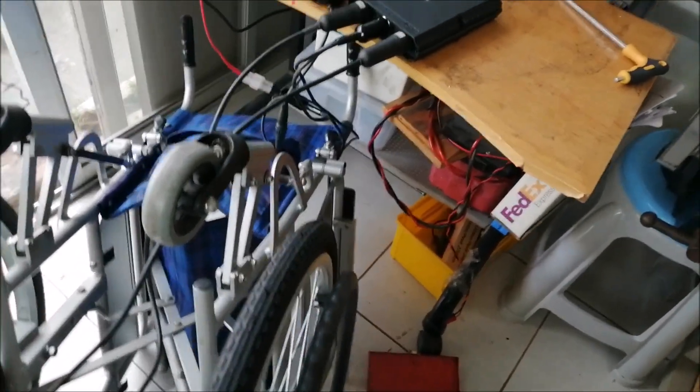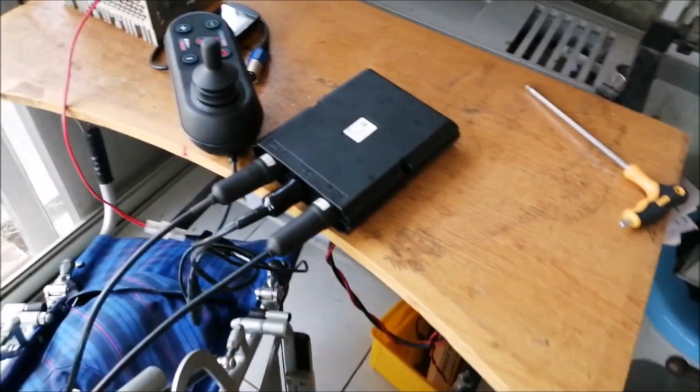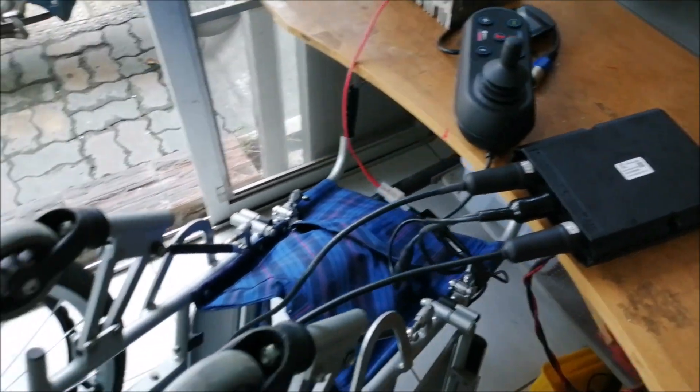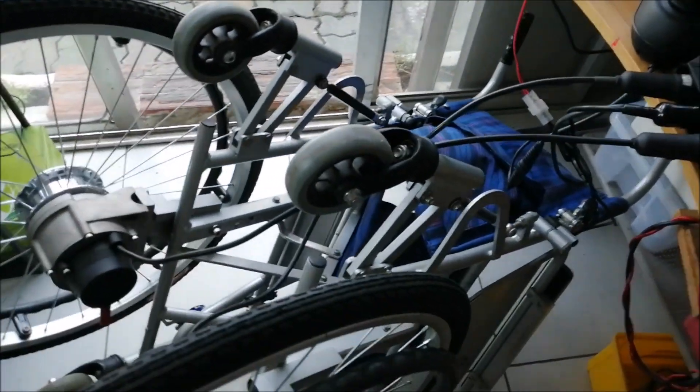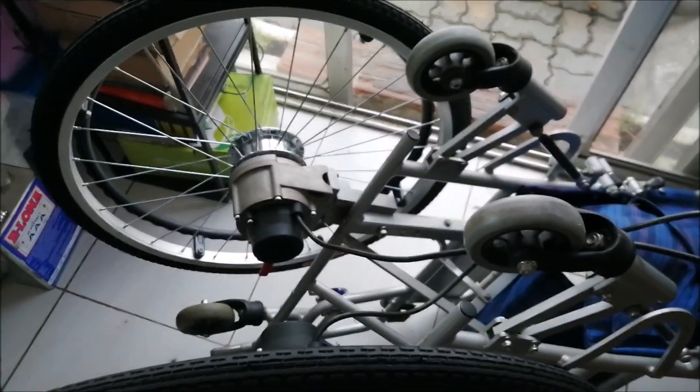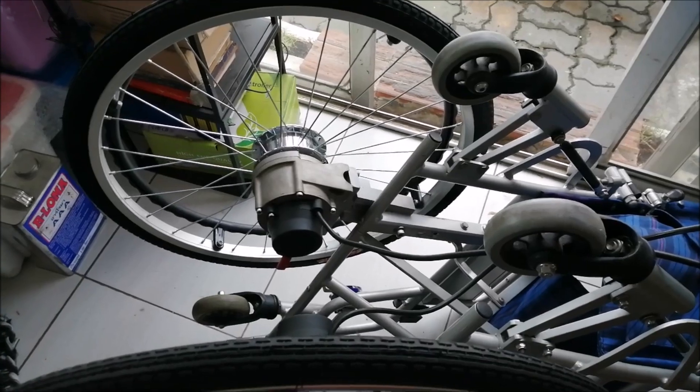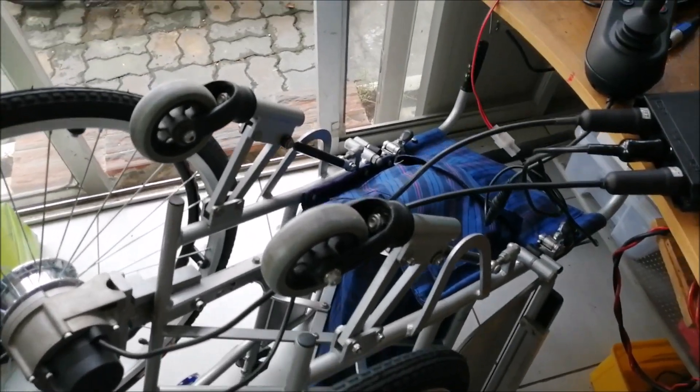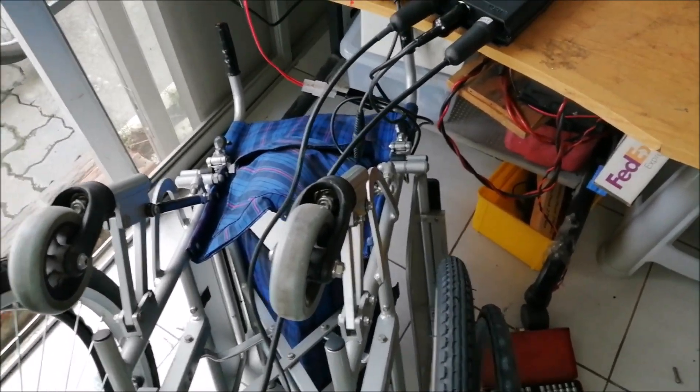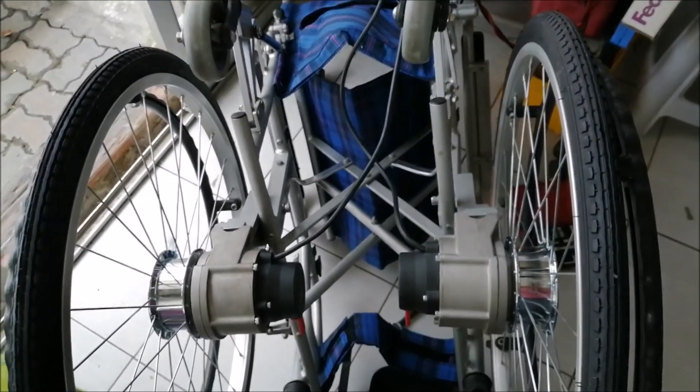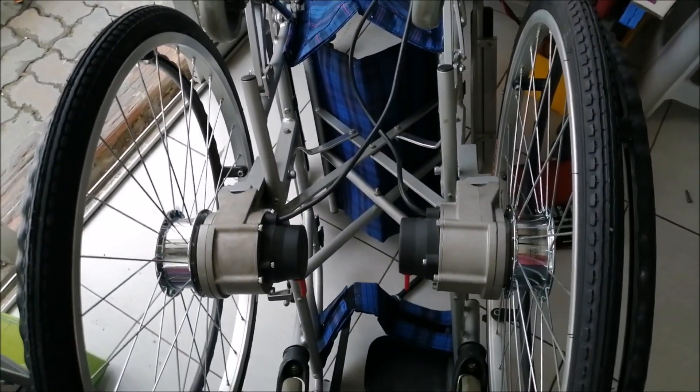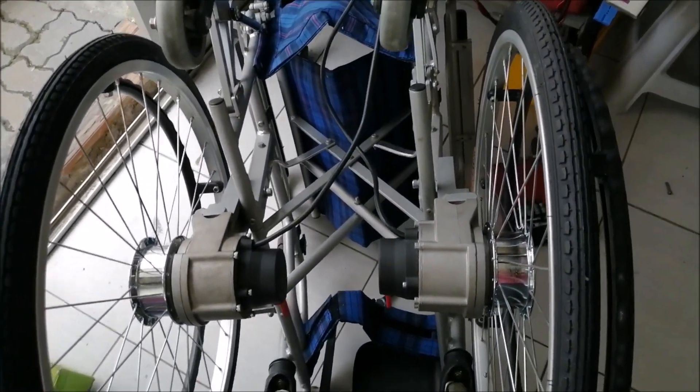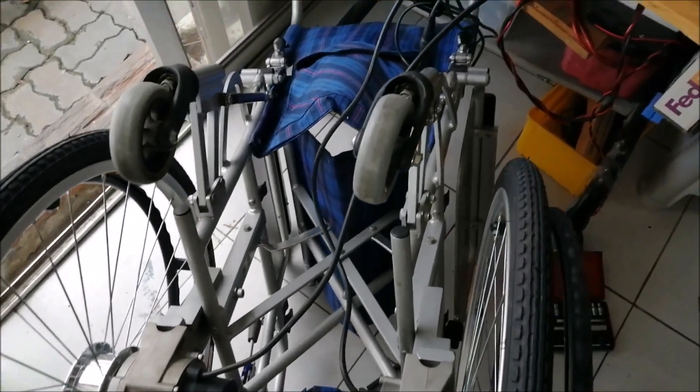This brushless control system realizes two brushless motors spinning at different speeds and directions, making sure the wheelchair can move freely in any direction and allowing the user to enjoy power simply controlled by the fingers.